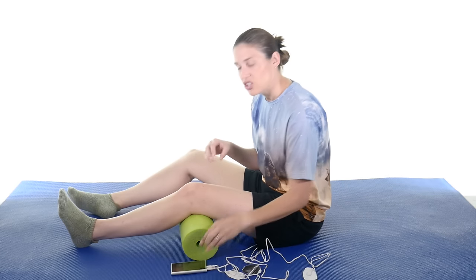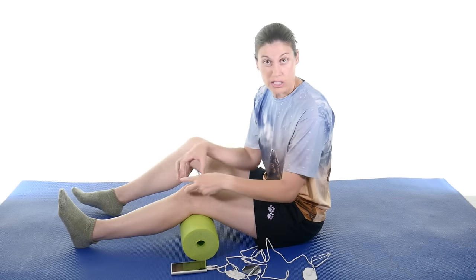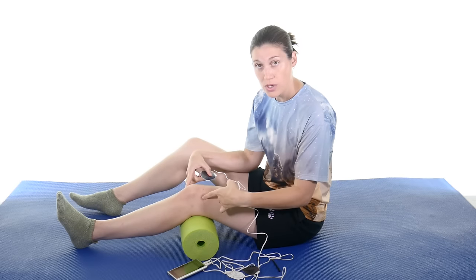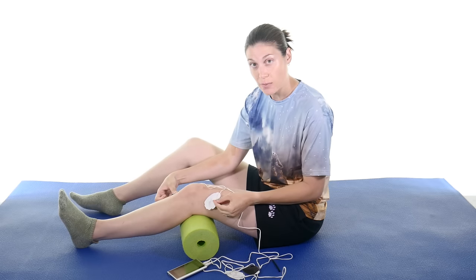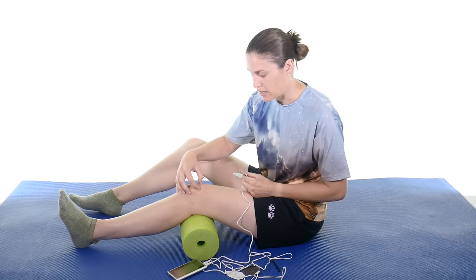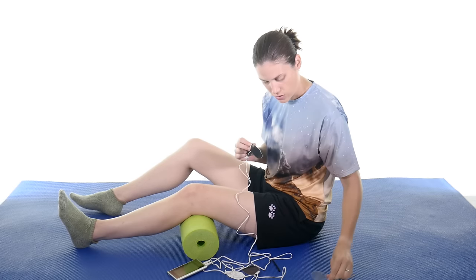So for the knee you have four electrodes, which is two channels, and they're going to cross each other like an X. Let's say you're having general knee pain around the kneecap or maybe a little bit lower on that patellar tendon — you want to encircle and encompass that area. Each channel has two electrodes. You want them to do the crossing, so if I put it on my knee I want this channel to be across from each other — not like this, but have one on the opposite side and then the other channel is going to cross it. So you want to make that X. If the pain's here, you want to make sure it crosses at that spot.